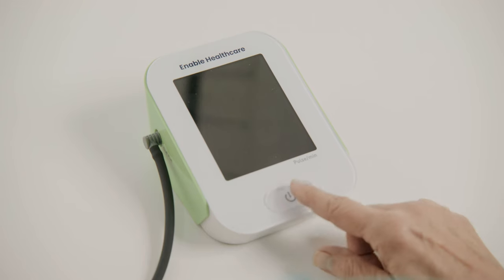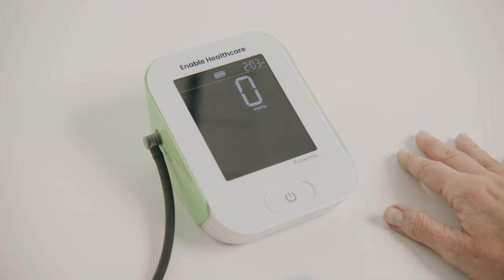Now, press the power button on the device to begin your reading. The cuff will inflate and your reading will be displayed upon reading completion. This process will take only a minute or so.